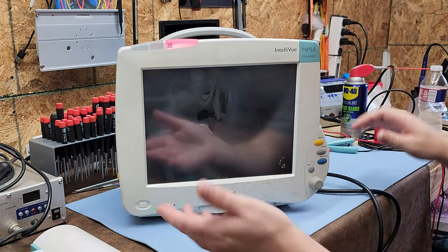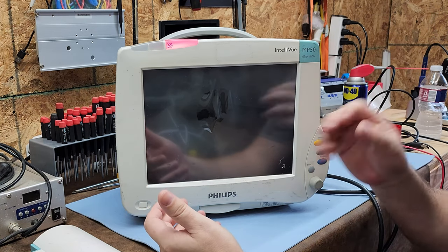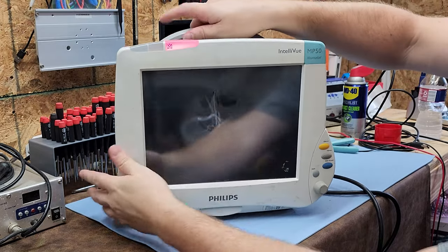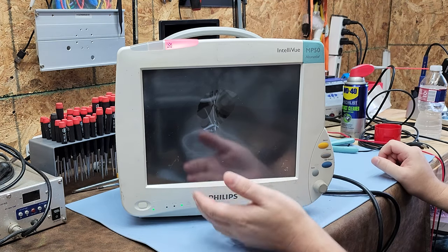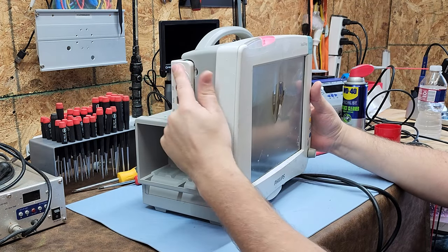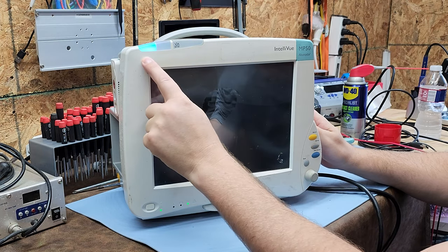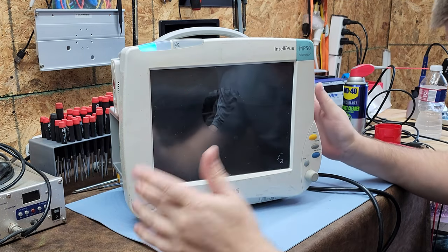One of the things I can show you guys is how to fix it. First diagnostic: you heard it boot, and then it started beeping. The beeping is your first error code — it's saying there's no MMS module. So I'll plug that in. Notice the red critical error; it's at a full stop. Once the module initializes all its parameters, it says it's ready to go. You can't see it because the screen is broken.